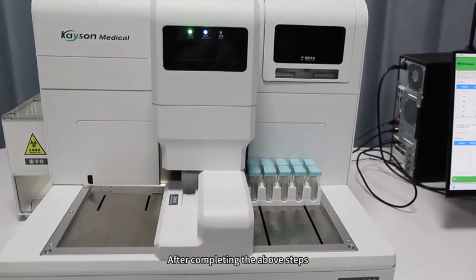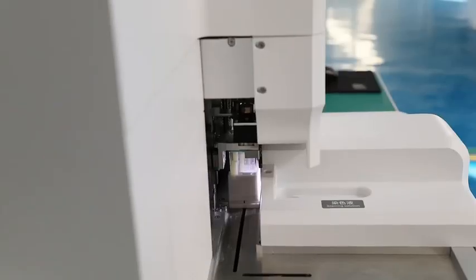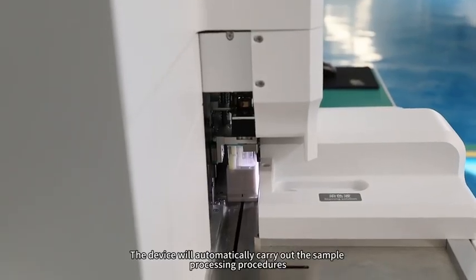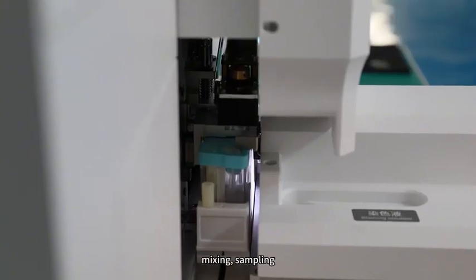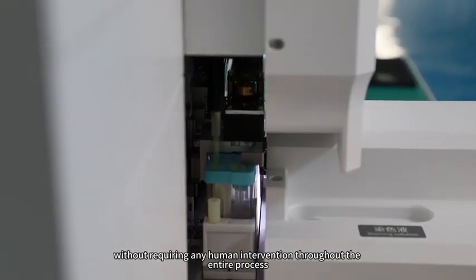Initiating Testing: After completing the above steps, click the Start button on the software interface. The device will automatically carry out the sample processing procedures, including adding liquid, mixing, and sampling, without requiring any human intervention throughout the entire process.